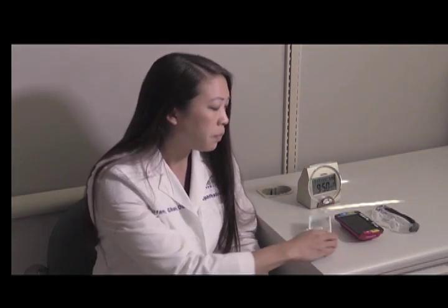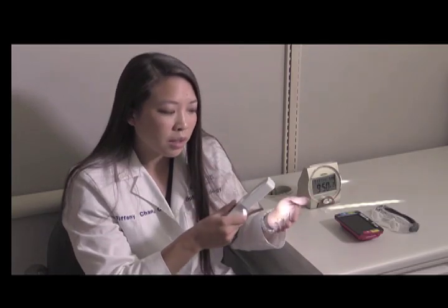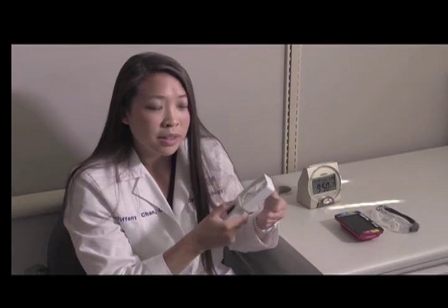I'm going to show you a few examples of devices that I work with. This is an example of a traditional handheld magnifier. Similar to other magnifiers, it has a light, and this can magnify the image and allow a person to read small print again.